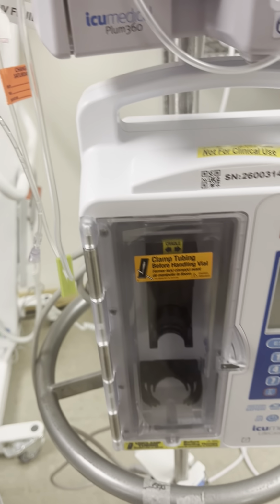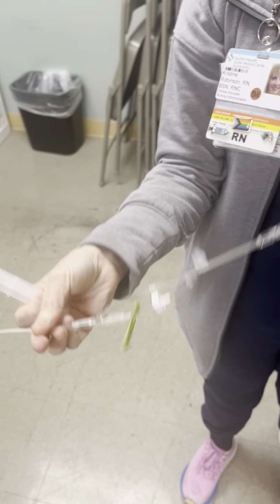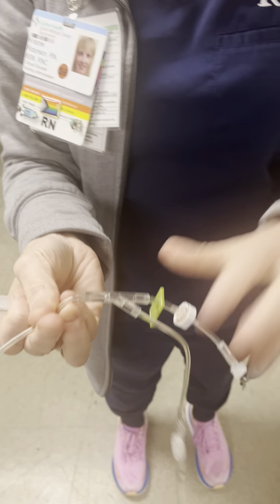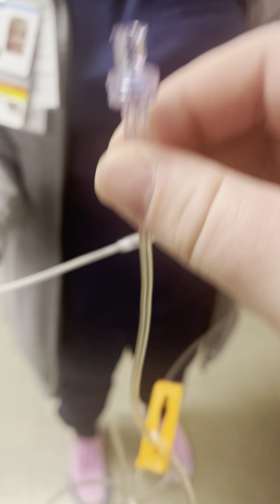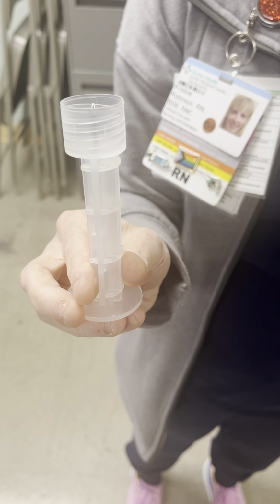The next things you're going to need are the IV tubing that goes with the PCA. The PCA tubing itself comes with a couple different pieces: the anti-reflux valve tubing, which has the PCA setup with the port that goes to the IV fluids, and the connection piece that goes into the PCA syringe.